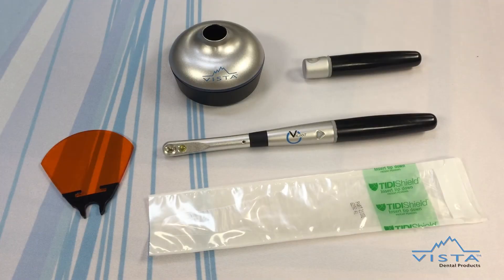The irradiance is 1,200 mW per square centimeter for standard and ramp modes, and 2,500 mW per square centimeter in boost mode. The average curing cycle is 20 seconds in standard and ramp modes and 3 seconds in boost mode. The user should reference the dental material manufacturer's instructions to ensure proper material curing settings.